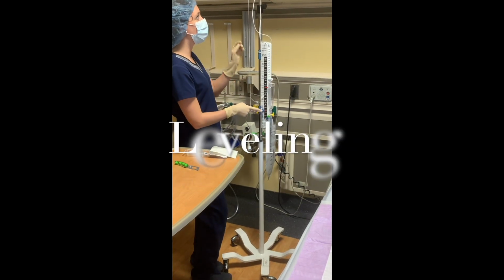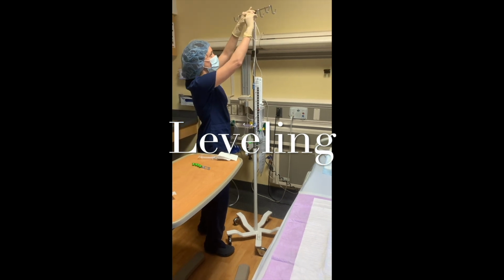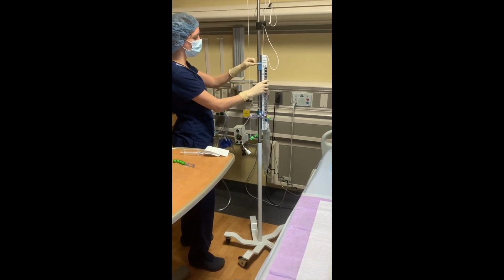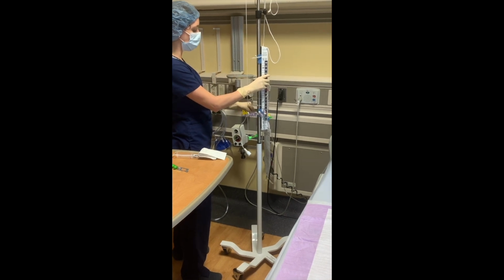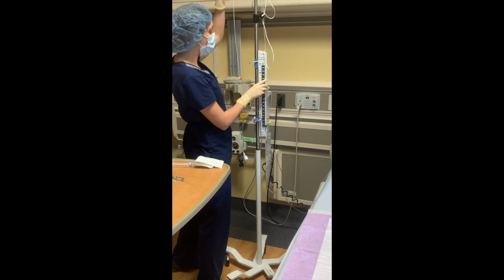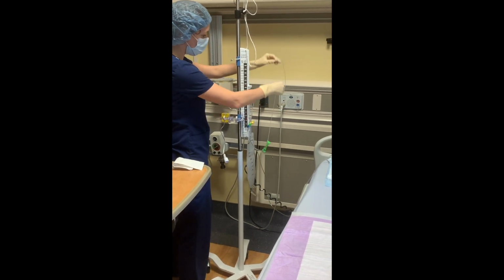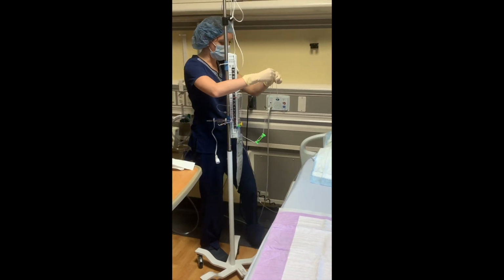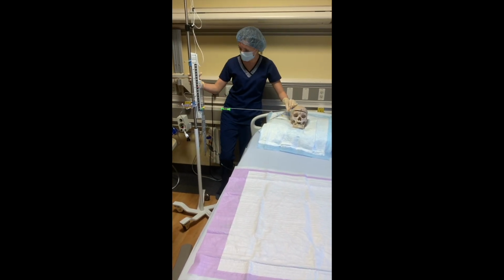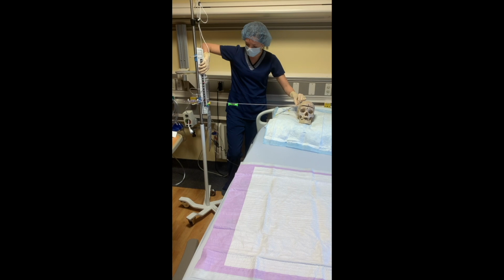Leveling of the collecting system refers to the position of the transducer in respect to the patient's external auditory meatus. You'll see with most collecting systems that there are 2 ways to affix the system to the IV pole. Most will have a compression type and a string type of adherence to the pole itself.